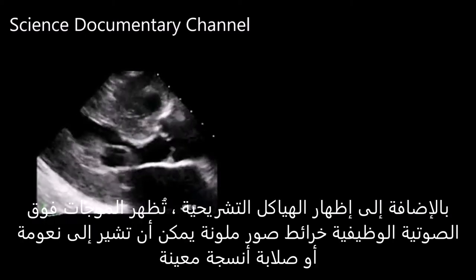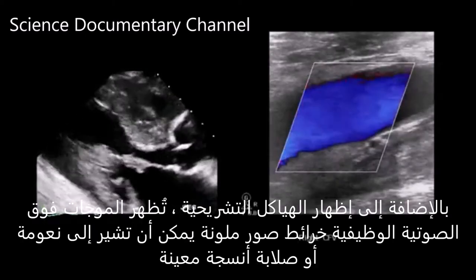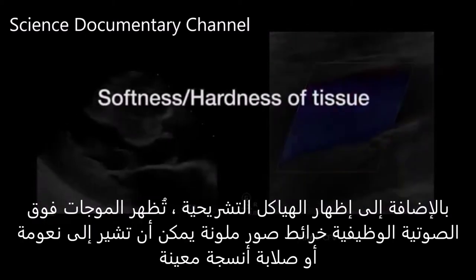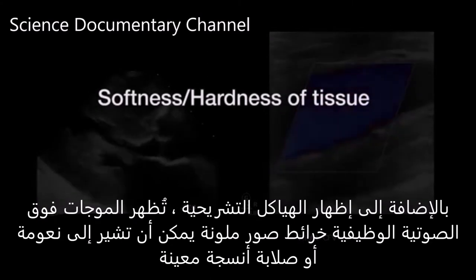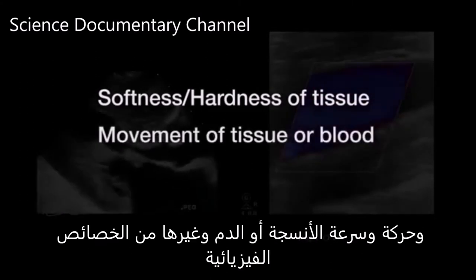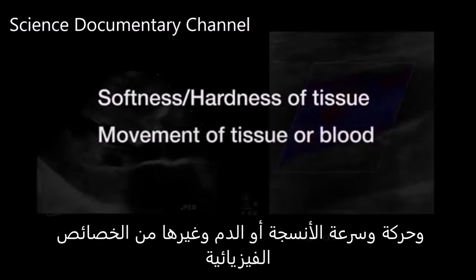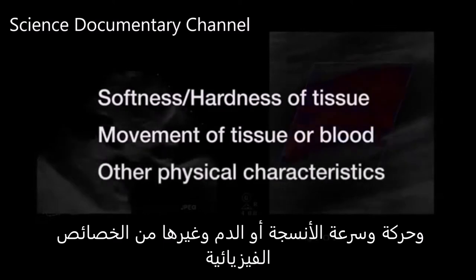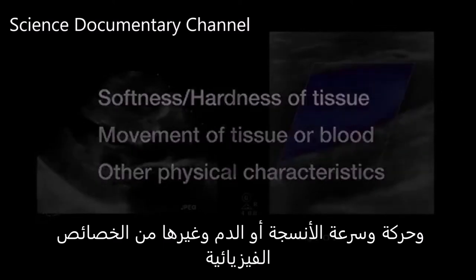In addition to showing anatomic structures, functional ultrasound shows color image maps that can indicate the softness or hardness of specific tissues, movement and velocity of tissue or blood, and other physical characteristics.